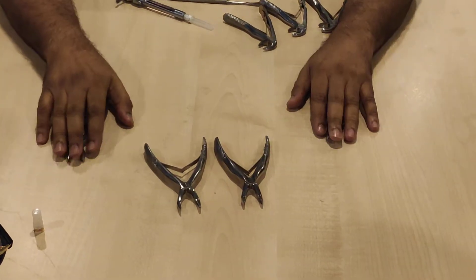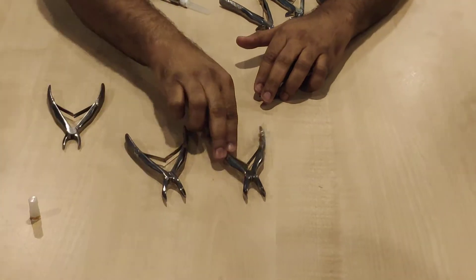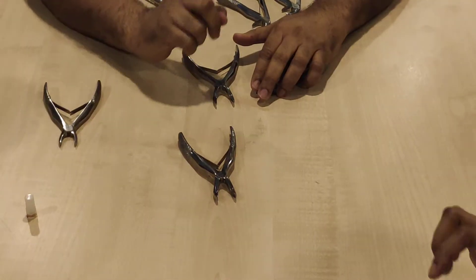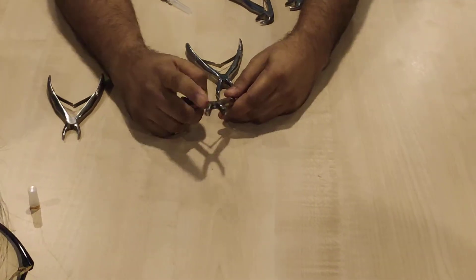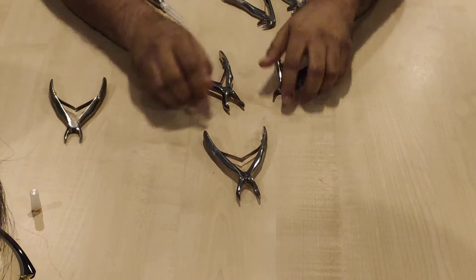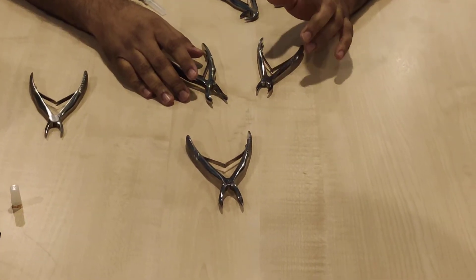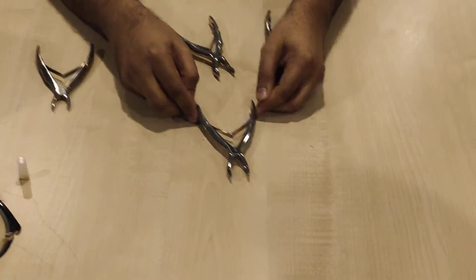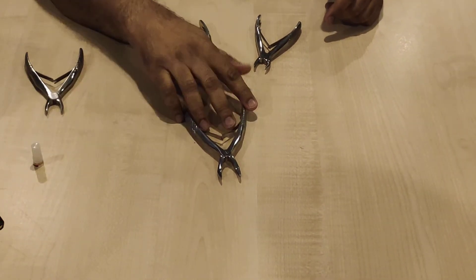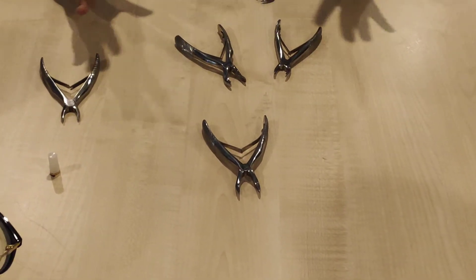What is remaining? Molars. Which of these two will be molars? This one will be molars — it's broad and it's got a sharp peak. The sharp peak again goes into the furcation area, so this is for the molars. So why is this the odd man out? Where do you think we use this one? Very good — root stumps. Because if you close them, the peaks touch. That means it is able to catch hold of something very small. So this is for your root pieces, posterior root pieces.